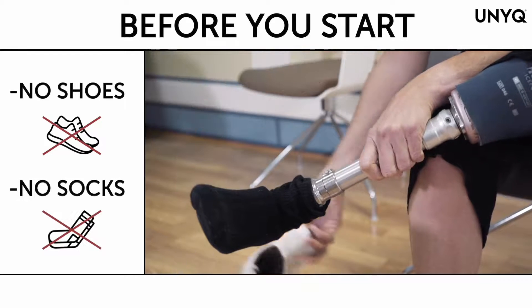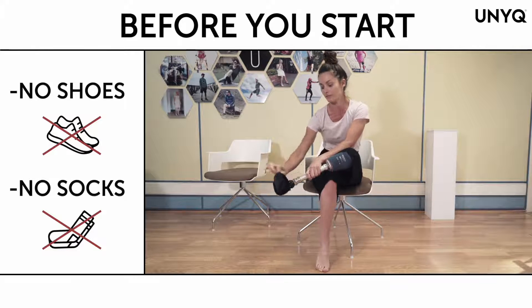If you are happy with all the information provided, please press order. Please press next. Before beginning to measure your patient, remember to remove shoes and socks. We will remind you of this step later on in this training video.